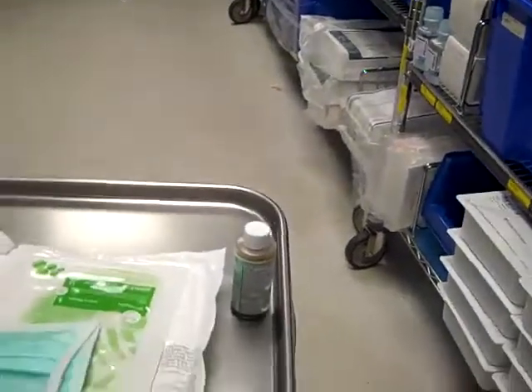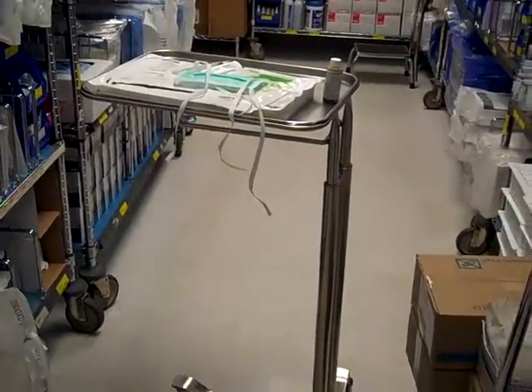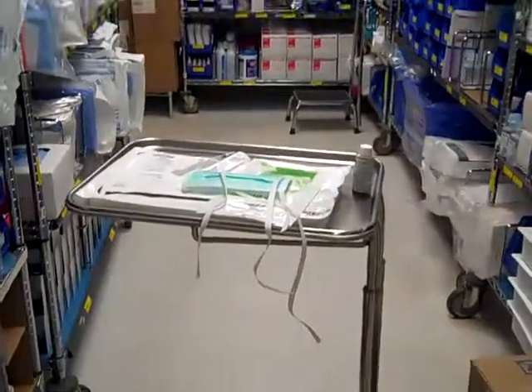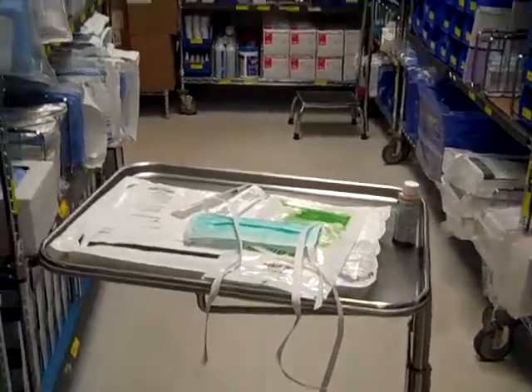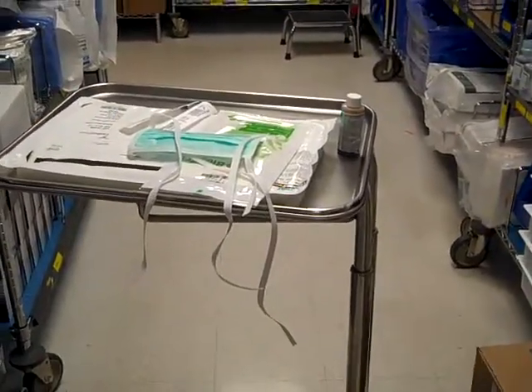The last two things you need: there's a mayo stand that I've brought into the supply room. The mayo stand is this metallic stand that is used both for equipment and for positioning. You'll want to make sure there's a mayo stand in the room, as well as several blankets — you probably want at least five to six blankets in the room for the doc.